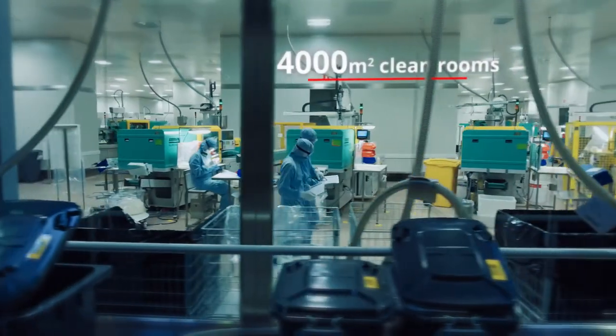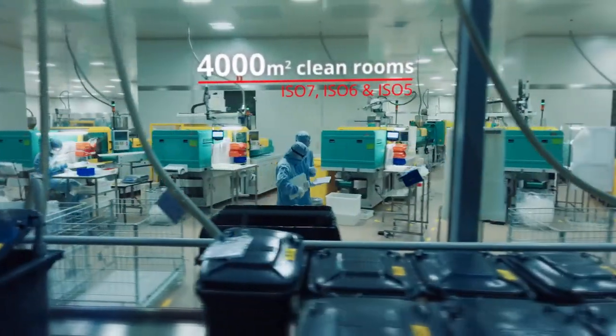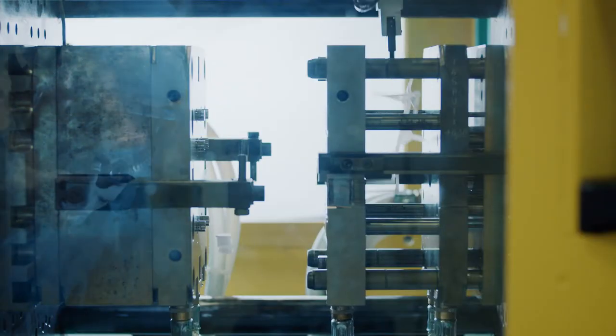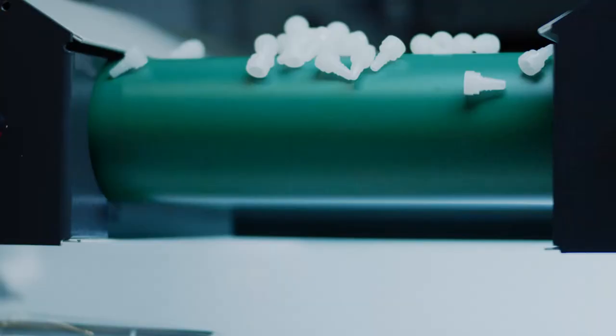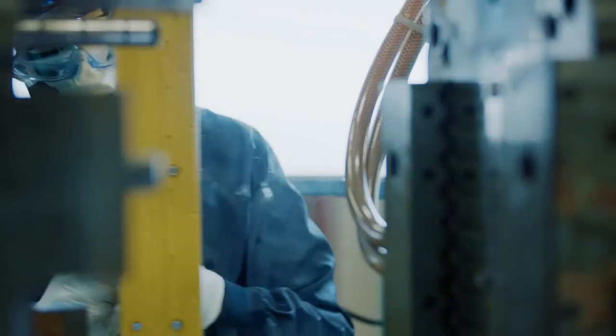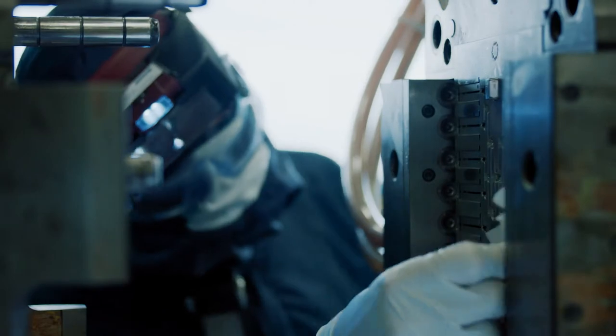4,000 square meters of clean rooms with ISO 7 and higher that produce a wide range of high-quality products with CE marking, drug master files, gamma irradiation, ETO and x-ray treatment following GMP standards.